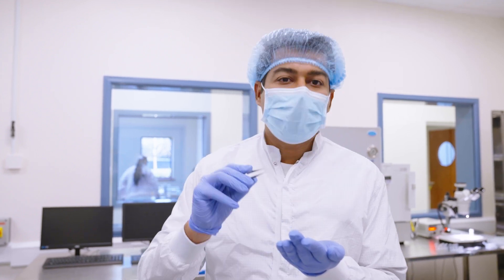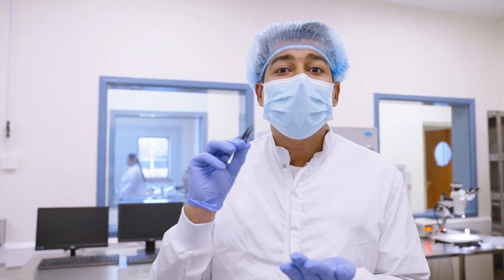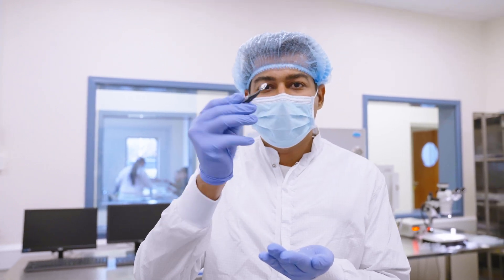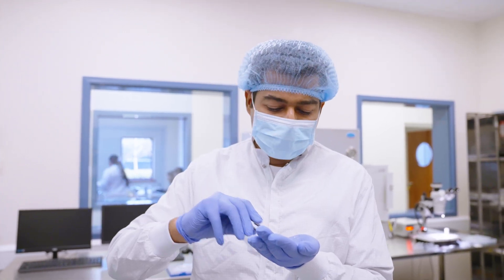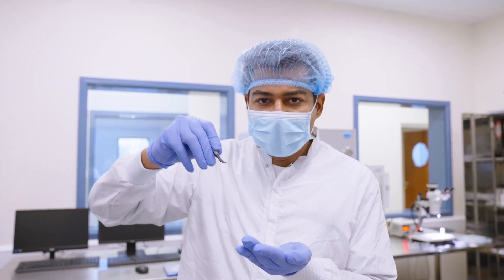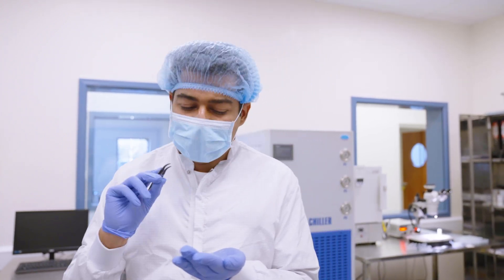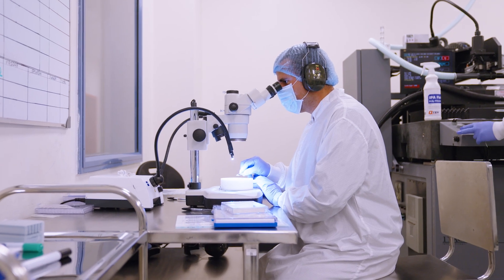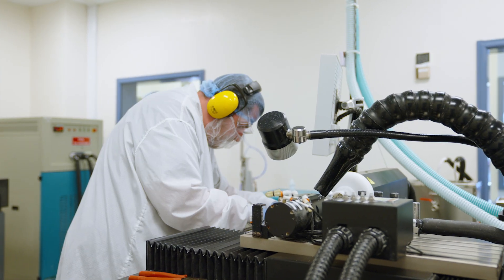Now the second step is called milling. In milling, what we do is take the lens shape we have given, and the machine cuts it to extract the final product. You can see that after milling, the final lens is cut out and we get it.